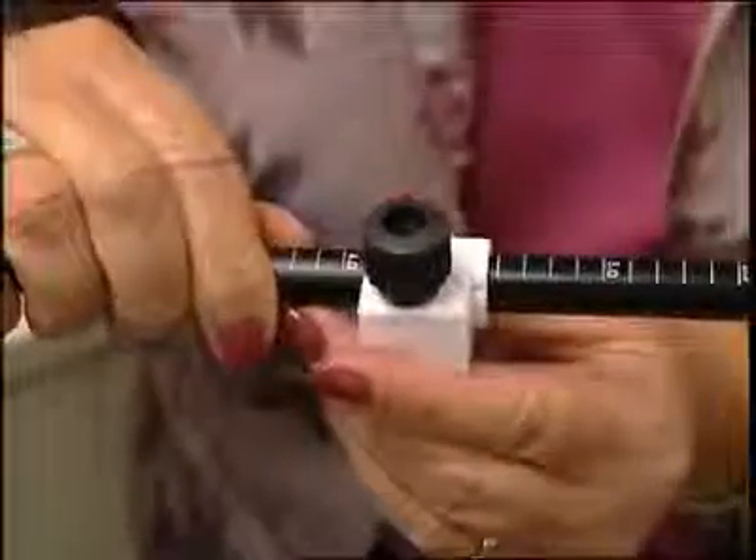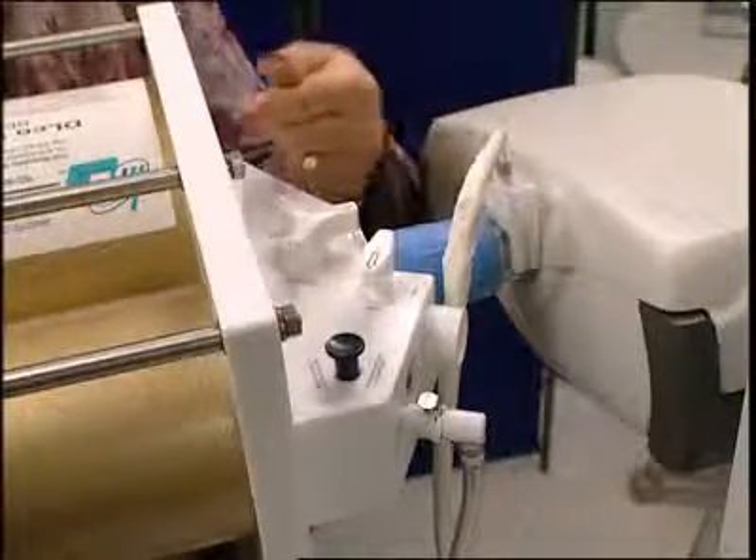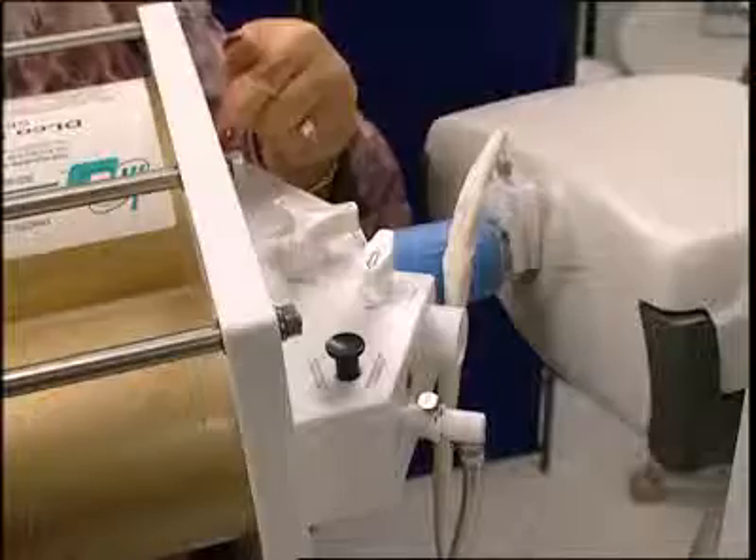Set the locking collar of the volume syringe's plunger to 3 liters. Prepare EasyLab QC for the next series of tests, making sure that the correct gas values are set for computing. Turn the three-pronged valve counter-clockwise, pointing the arrows to the volume syringe and the main port.